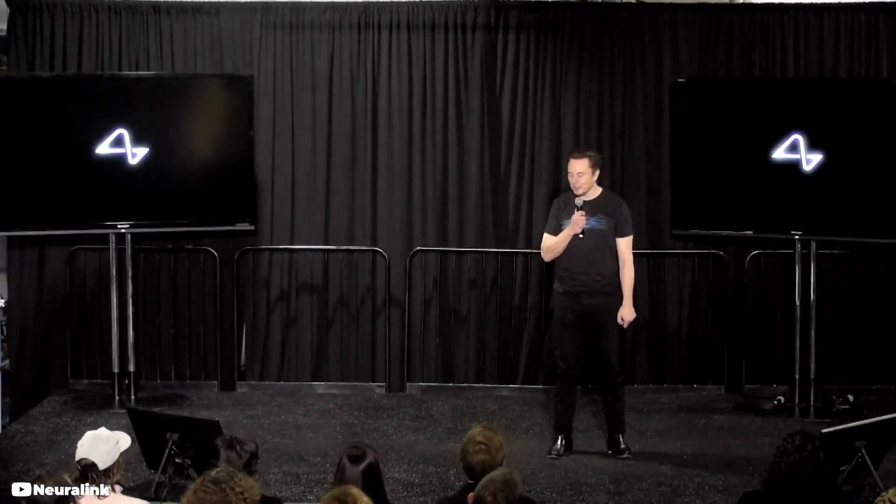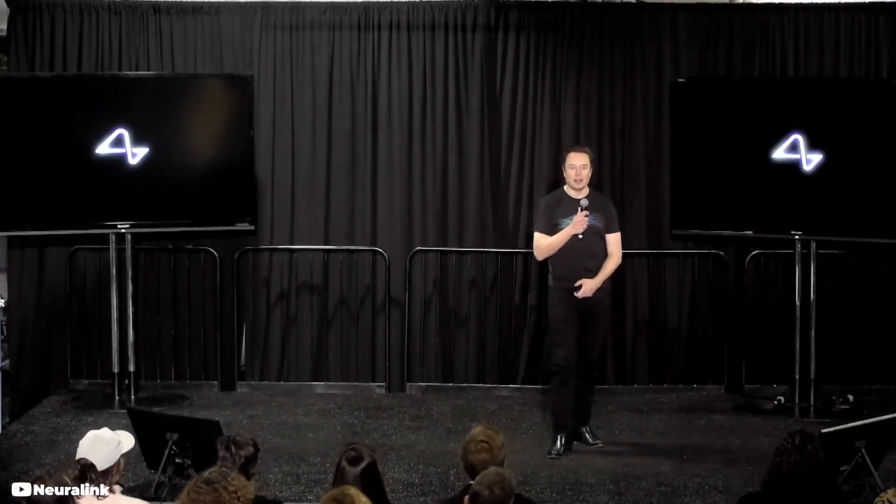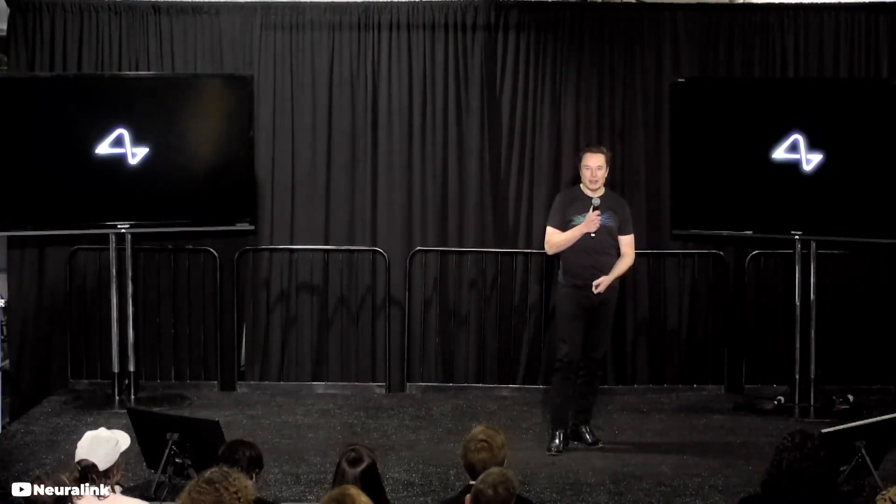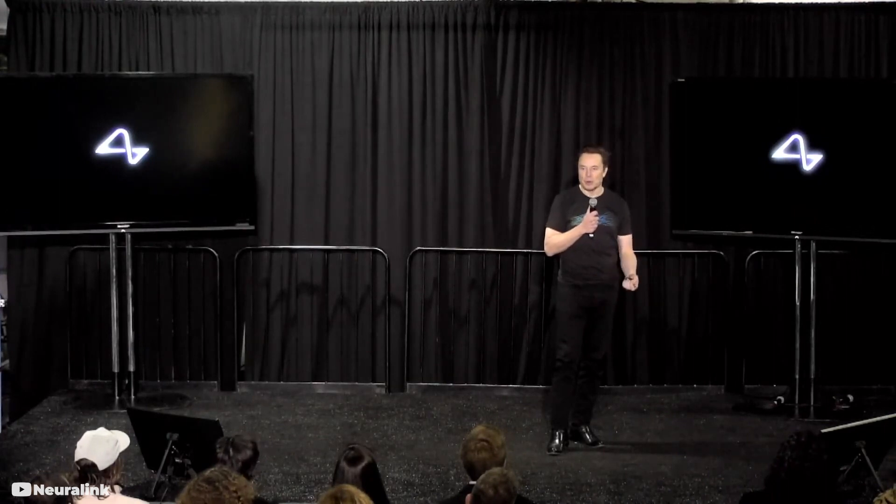Welcome to the Neuralink Show & Tell. We've got an amazing amount of new developments to share with you that I think are incredibly exciting, as well as tell you about the future of what we're planning to do here.